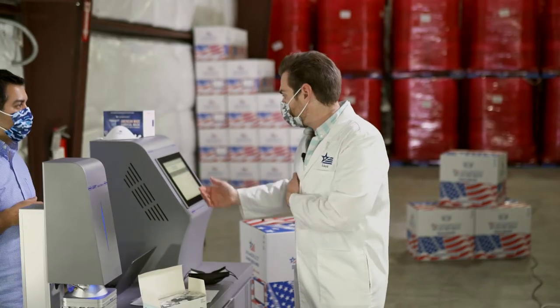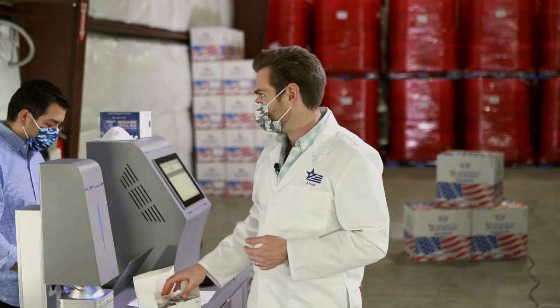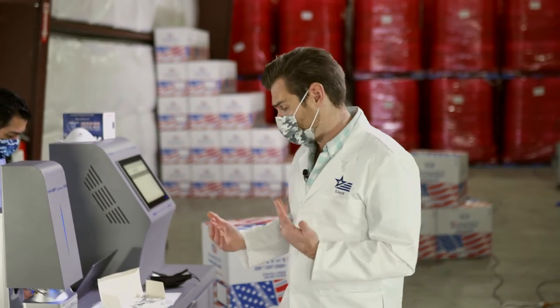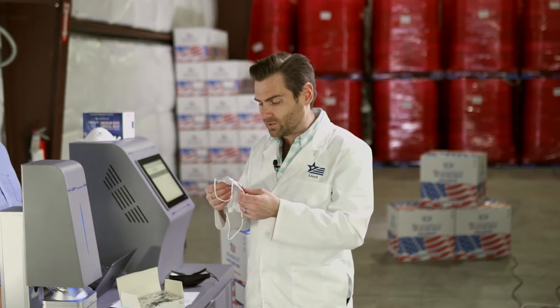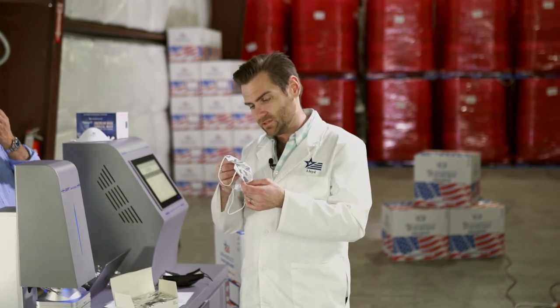They've got a great nose wire. I don't love the fit of these, but I love the feel — they're very soft. Airflow resistance of 102 pascals. Typically you want that to be under 150, so that's great. It meets that standard. Individually packaged. It really is super soft, like amazing soft fabric.